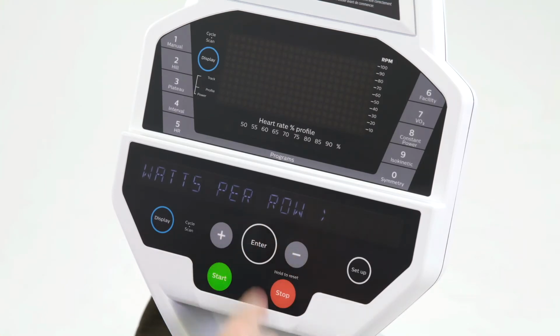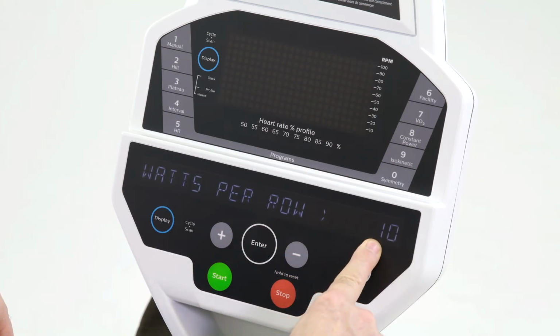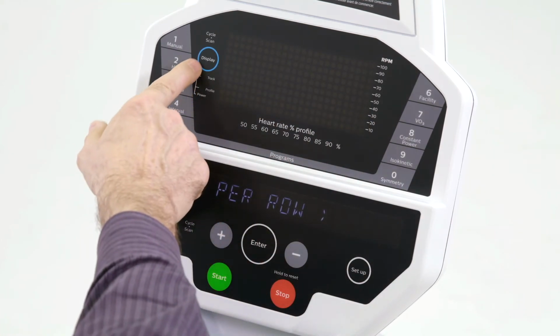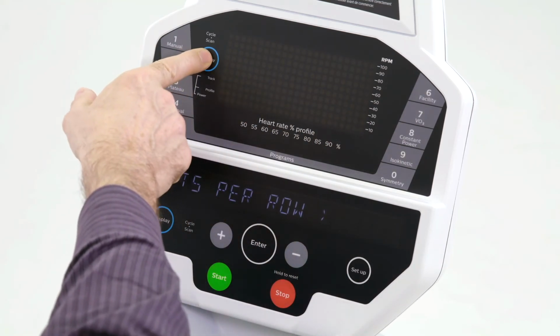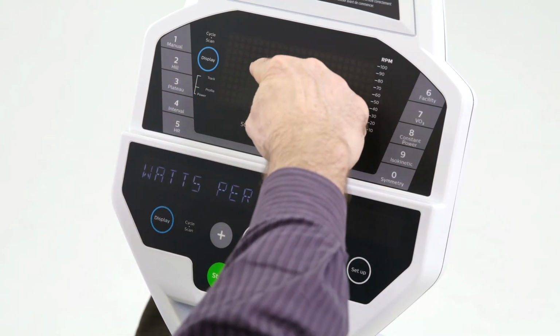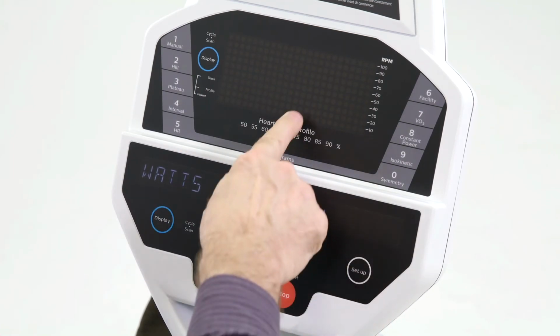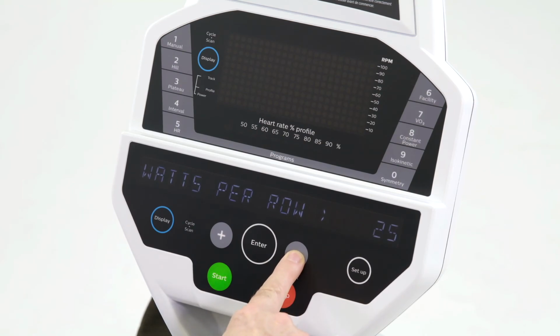The next function is watts per row. In here we set the default as 10 watts per row. We're talking about the rows of lights. So when we are in a program and we can see these rows of lights light up, it'll show the power, so we'll be able to see the patient's power on the screen here. And right now it would be 10 watts for every row. You could set that all the way up to 50 watts a row, 100 watts per row, I believe, which is a little much, but you're allowed.